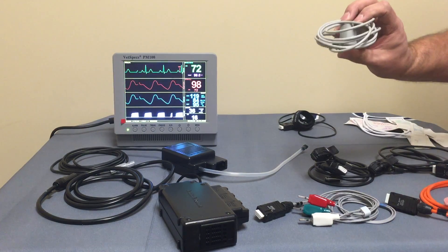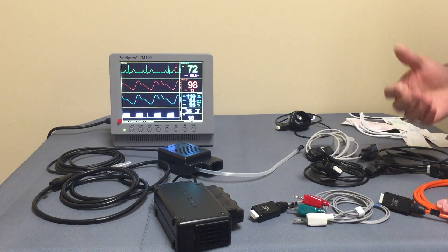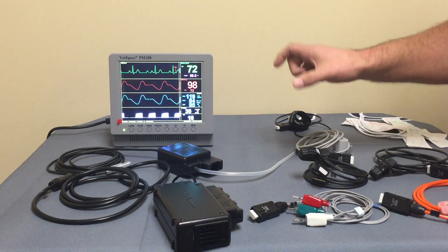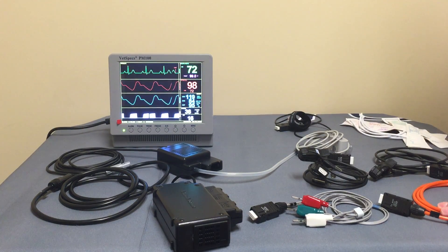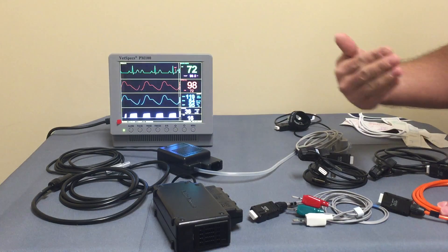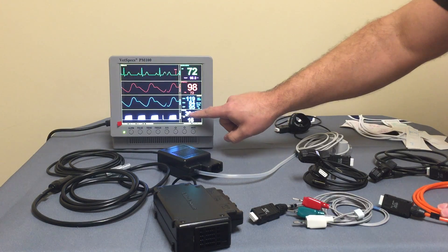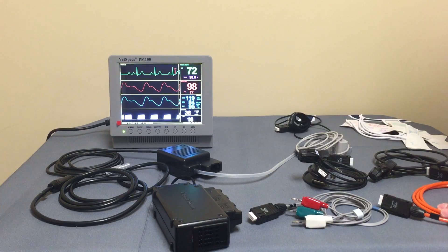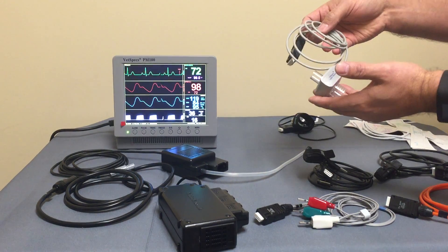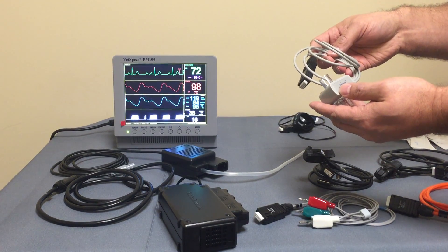VetSpecs also has a simpler version — an airway direct respiration sensor — not quite as advanced. It hooks right to the trach tube and picks up the patient's respiratory movement via temperature change as the patient breathes in and out, giving you the same respiratory type of calculation but without the CO2 value. This is a nice option because capnography technology is expensive, and being able to save a little cost is pretty nice.